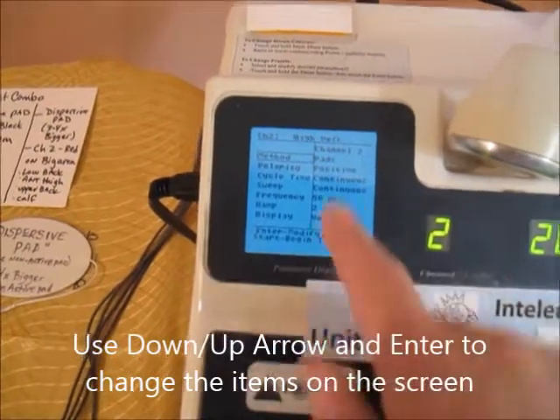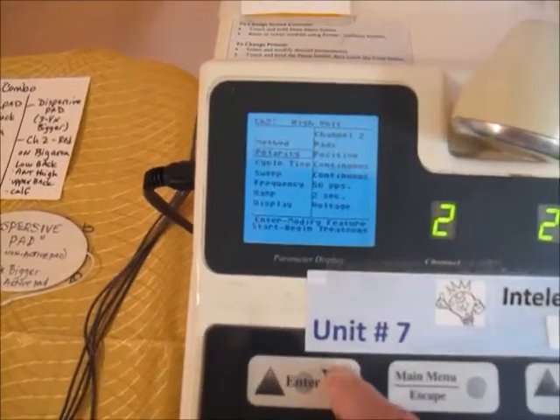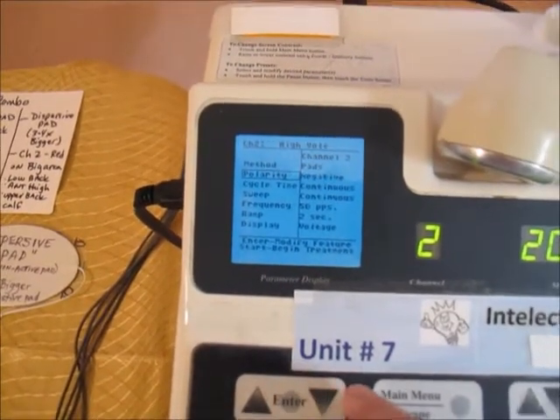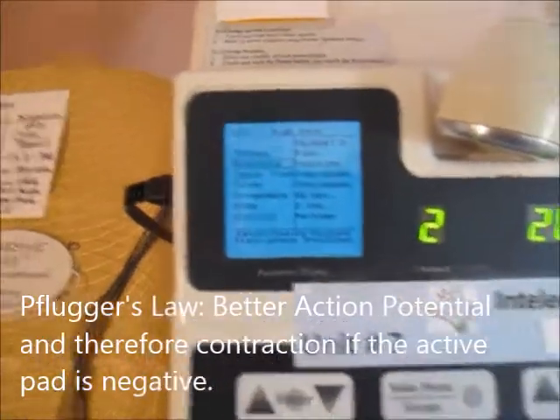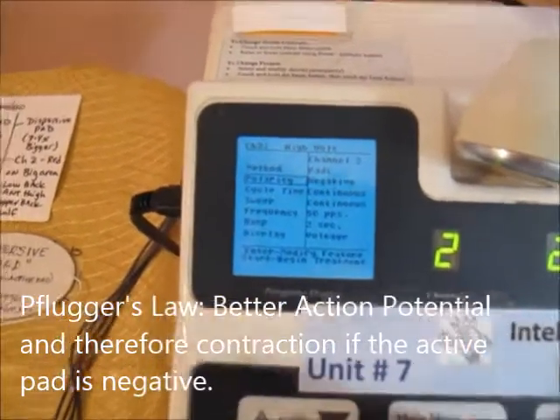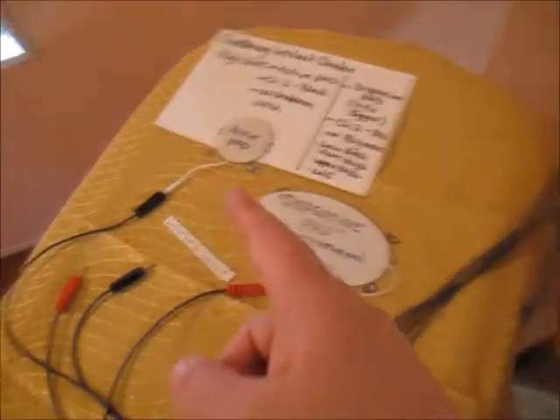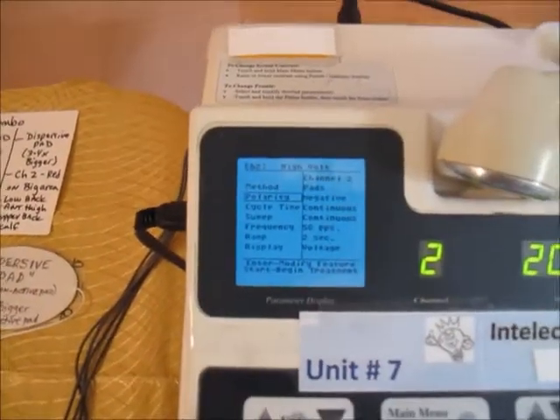For the method, just leave it as pads. For polarity, we're going to choose negative. This has to do with Pflueger's Law, which states that you get a better action potential under the negative pad. So we always set the active pad — the small pad — to negative.